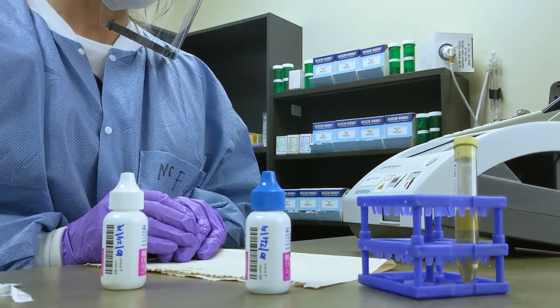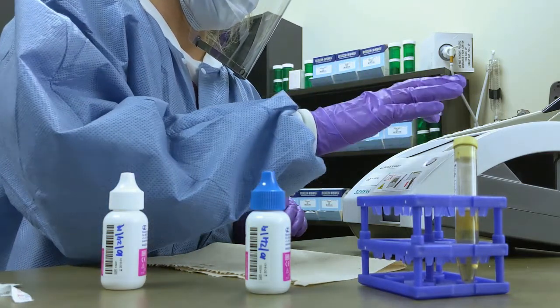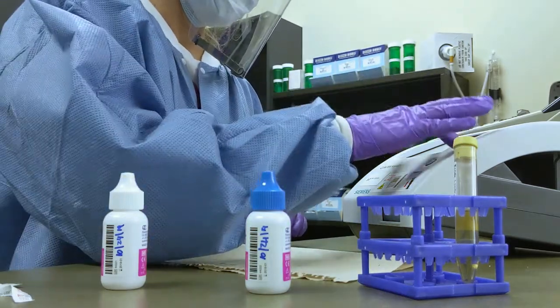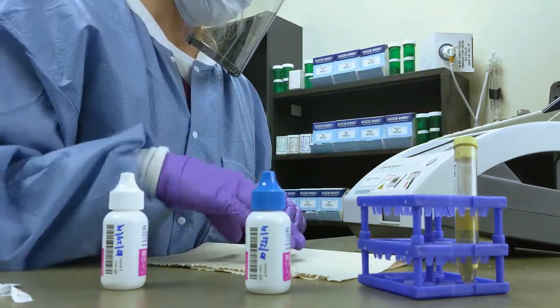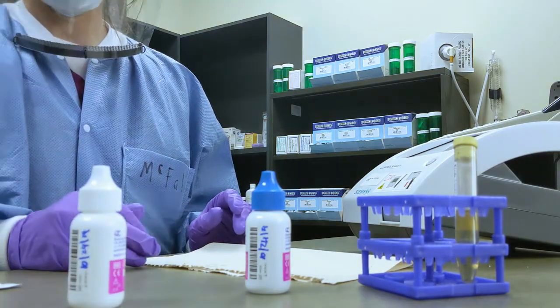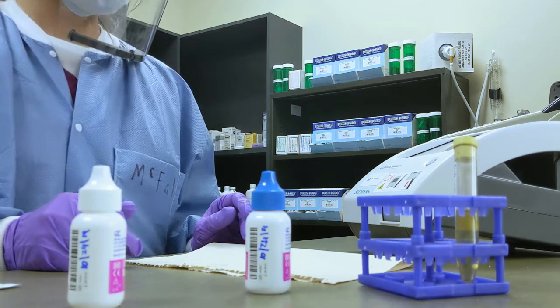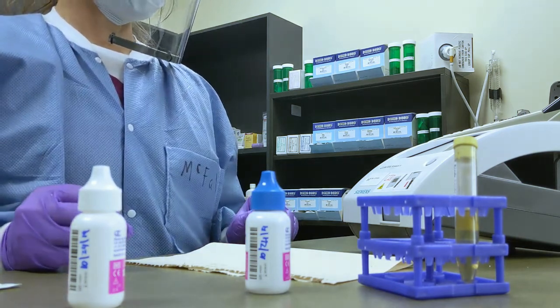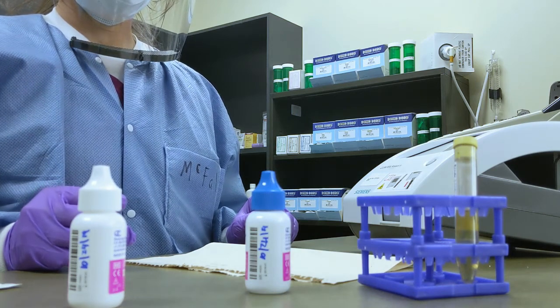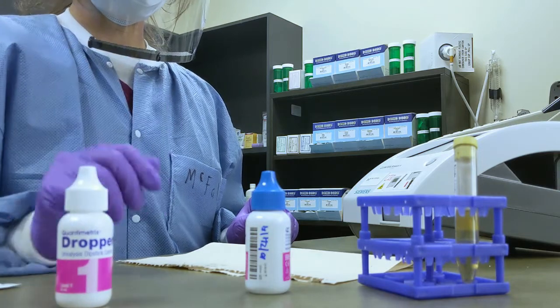If you were doing it manually — actually, I don't think you can read it manually. So it's still a test that looks like it takes about 30-some seconds. She's doing a level 1 QC, then a level 2 QC, and then we'll do our patient.